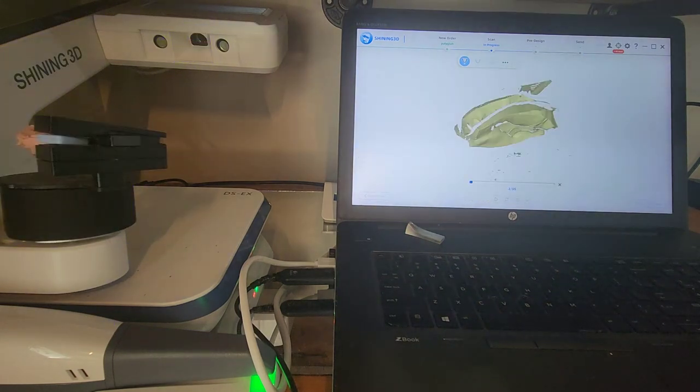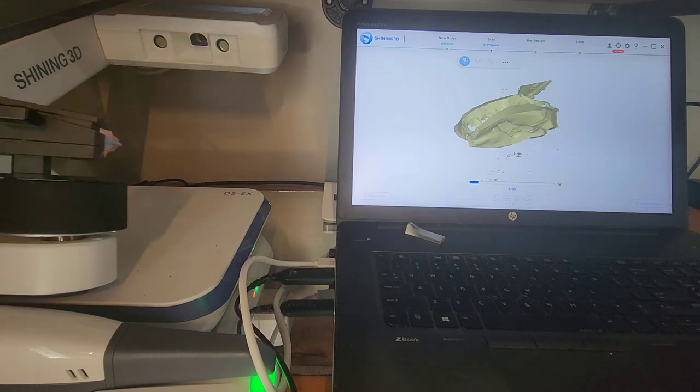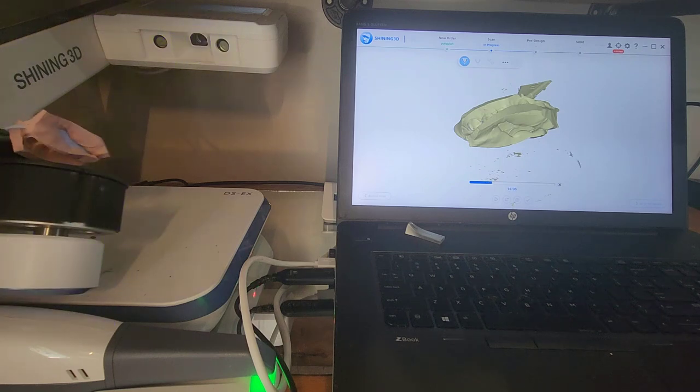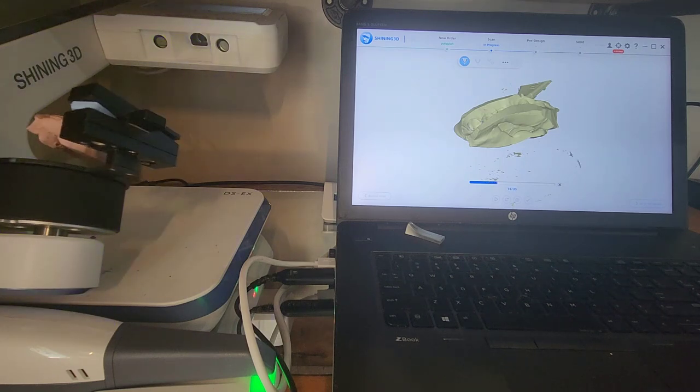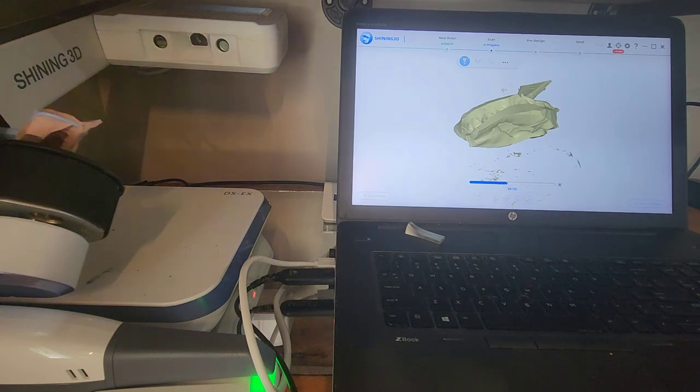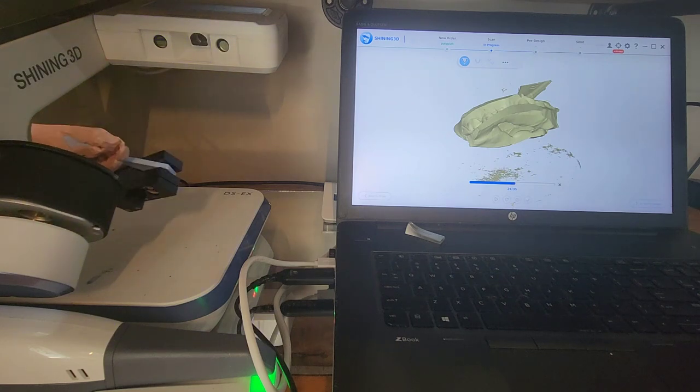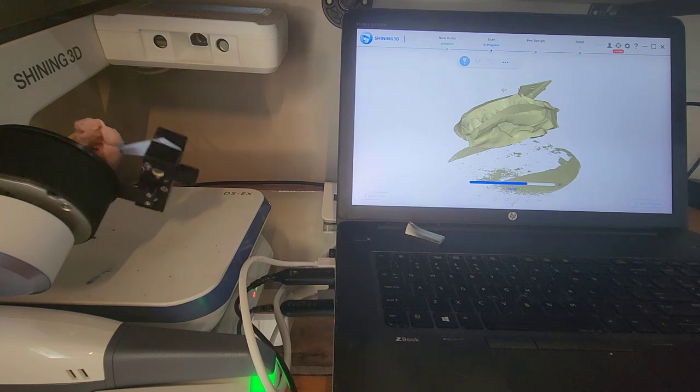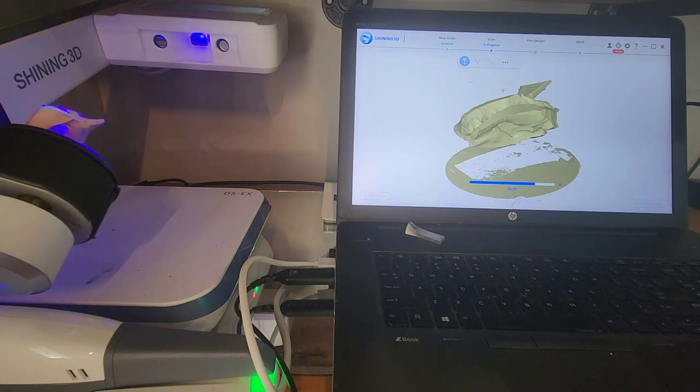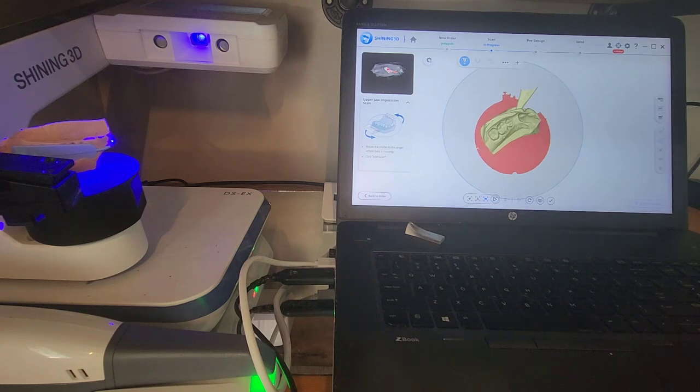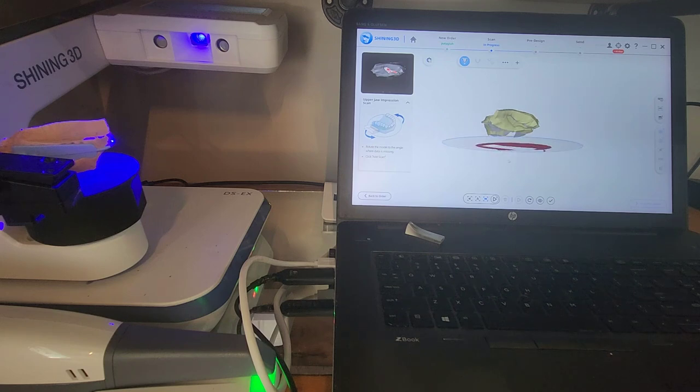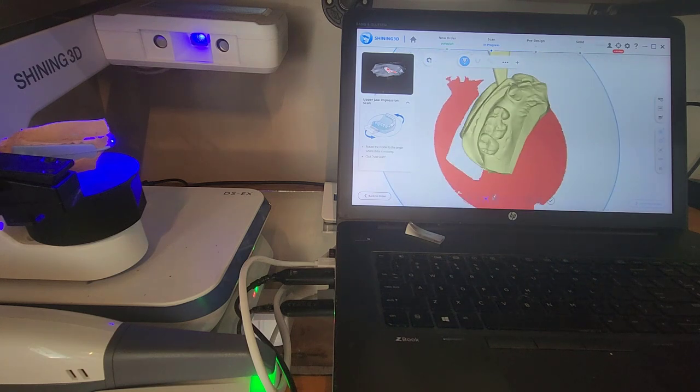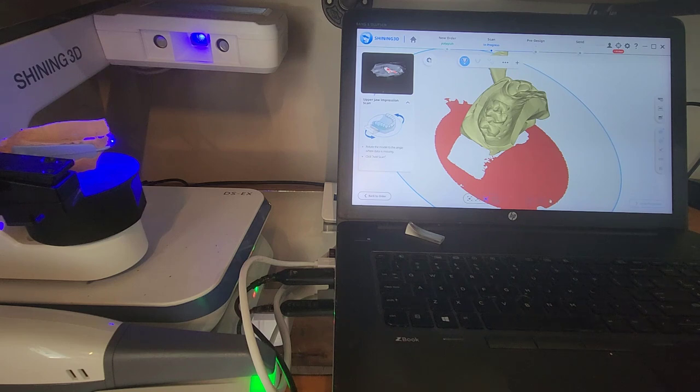So one of the things I like about this scanner is really, really fast. You can see it's just really flying through the images, rotates very quickly, and it renders really quickly as well. So it's going to take about 35 images since this is our arch of focus. It'll take a few more on this arch than it will on the opposing. But regardless, it's very quick, so it just takes a few seconds. And now that's processing, and so you can see it picks up a little bit of the table, but this plane right here indicates what it's going to cut off as noise. So that's great. I'm looking at it. I don't see any missing data at all. If I did, I could orient to look into that area and hit Add Scan. But it doesn't appear to be a need to, so I'll hit Complete.